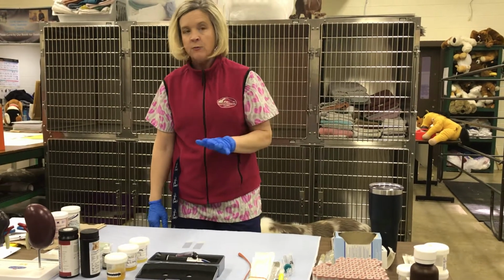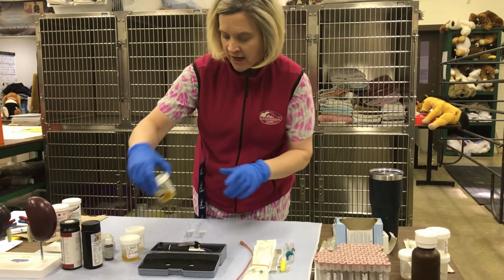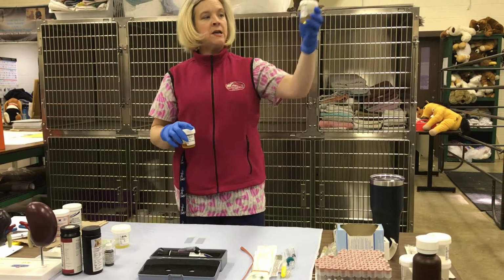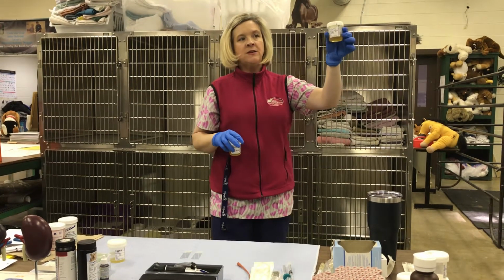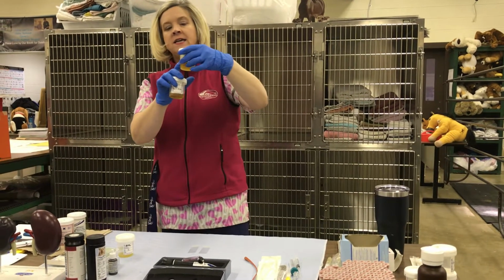Through the steps of how to perform a urinalysis, okay? So today we actually have 2 samples, and with that we have Corny's sample, which is going to be in our sterile cup. This is a free catch sample, and so we have it dated and we have a time.